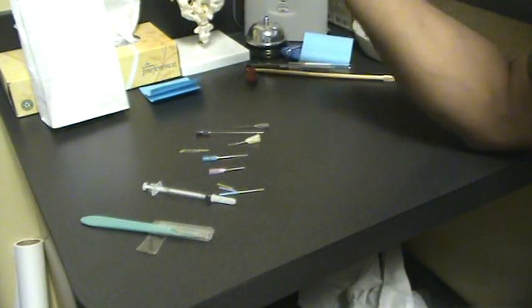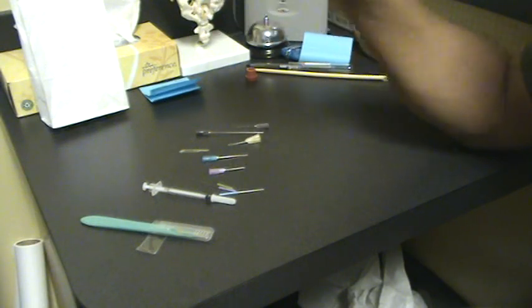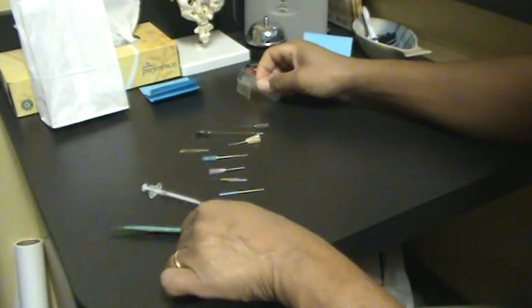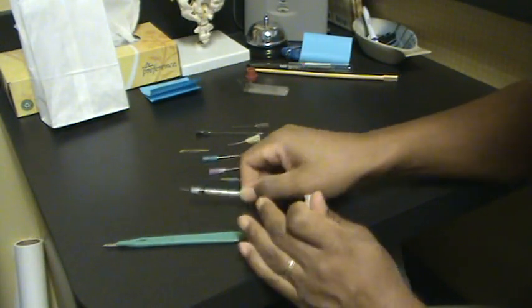If you used a screwdriver that was too large for the screw, you would really chew up the screw. So all these do the same thing. This is a scalpel. All these do the same thing — this is just a syringe with a needle on it too. Injection.